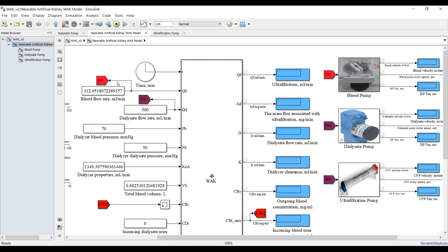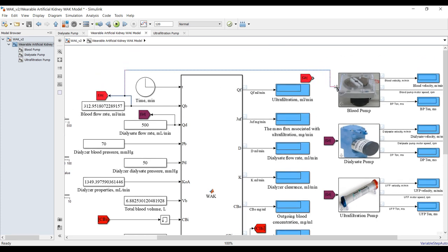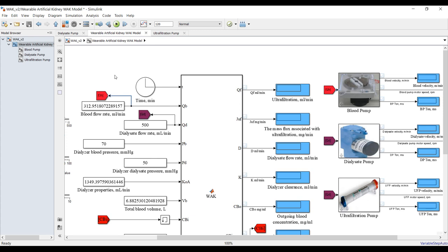The system should connect this signal as input to the blood pump. However, I used signal routing instead of making direct connections — otherwise the diagram would become something like three branches. So all I have to do is take a signal routing from this one as input to the blood pump, and the same for dialysis and ultrafiltration.